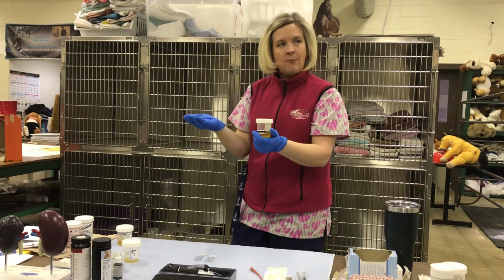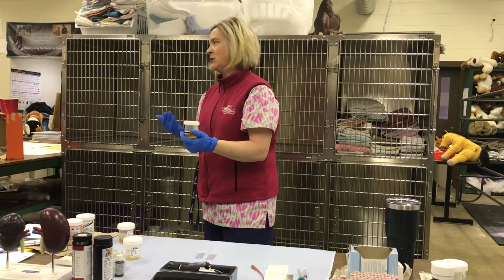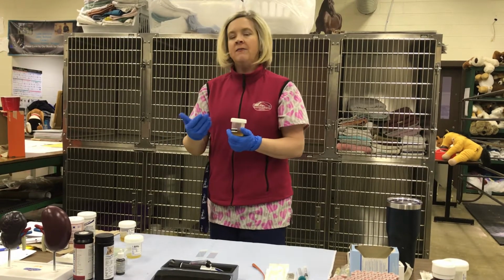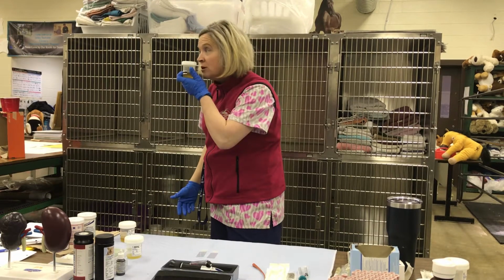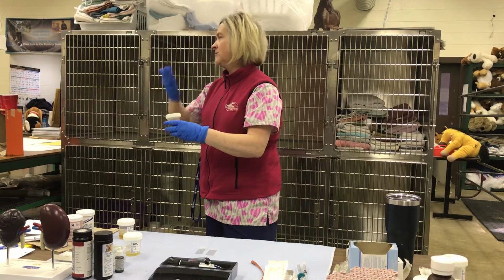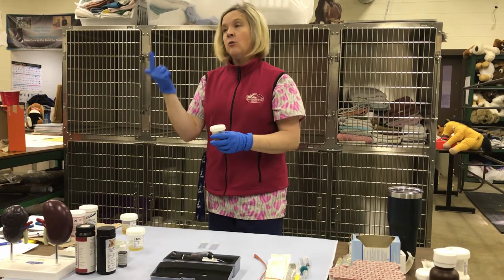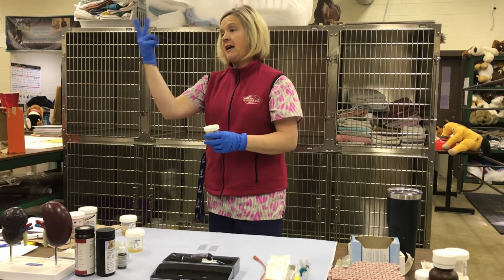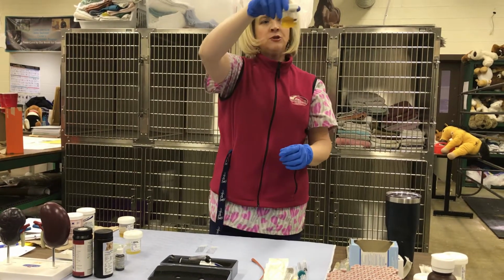Obviously, when you take the cap off, you're going to smell it, okay? Some urine samples are going to be really strong, and that's pretty obvious. It's not like we're expecting you to put your nose down there, but as you open it, you're going to be able to smell. The main things that we're looking for is the turbidity. We're looking at the color, okay, and the appearance of the urine sample. So that's what we're going to do right offhand.